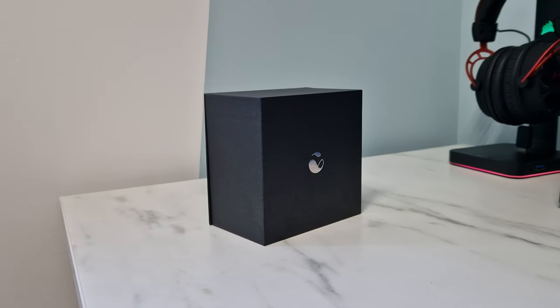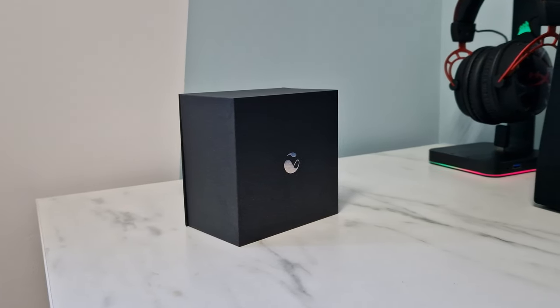Welcome back to Dipscovery. Today I'm doing an unboxing and look at the YHE BP Doctor Pro smartwatch that they sent me over from YHE Technologies.